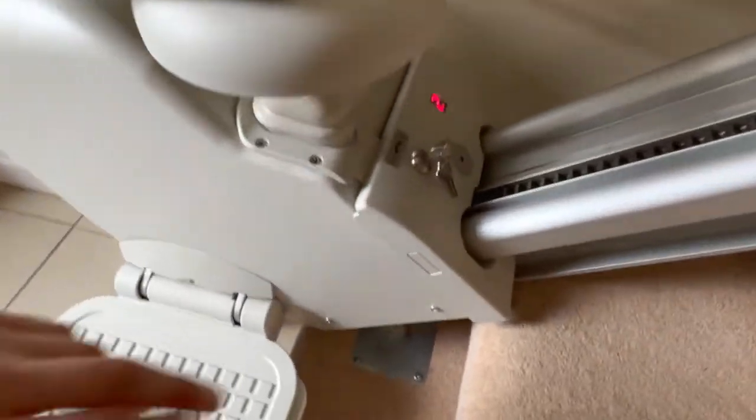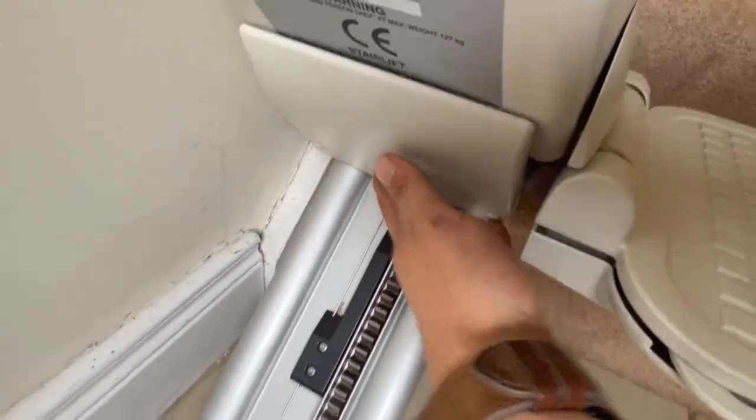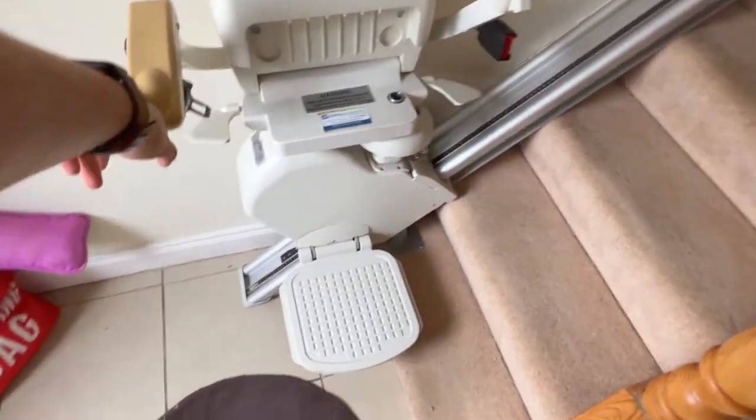Covering more safety sensors: if there was a hand there, if there was an item here, if there was an item here — this stair lift is nearly annoying in the amount of safety sensors it has, but ultimately safety first.